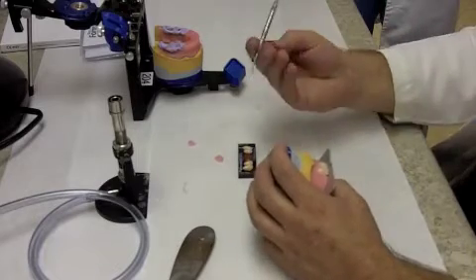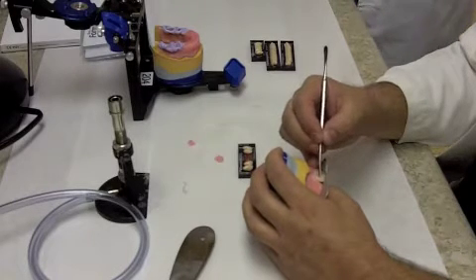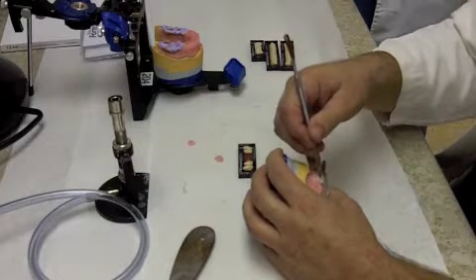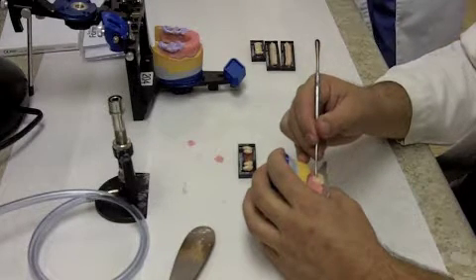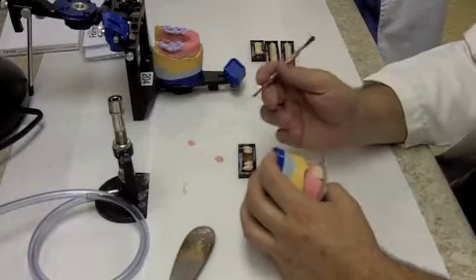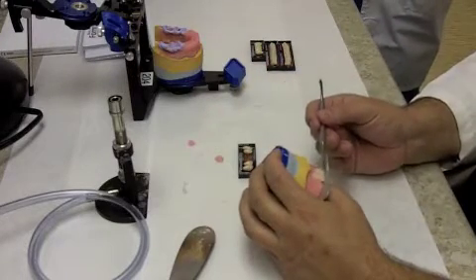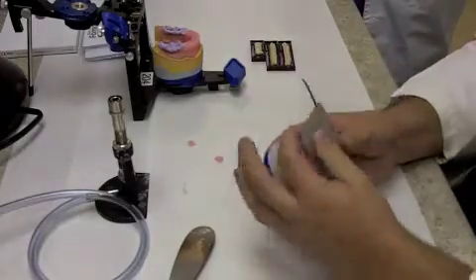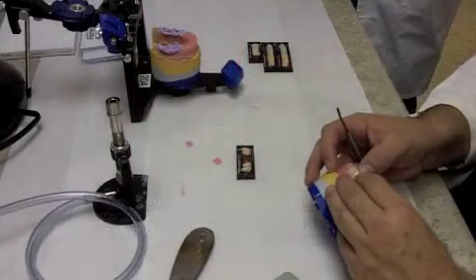We're letting the wax cool just a little bit and then setting the next tooth. We're going to bring our plate back in — we want the centrals lined up with this plate, incisal edges on the plate, teeth in line facially with our wax rim, and using the frenum attachment as our midline. On a live patient, you'd use whatever midline you've determined is appropriate. The incisal edges should be touching the table, and there's a natural distal bulge to the facial surface of the central, so they look slightly distally inclined even though they are relatively vertical.